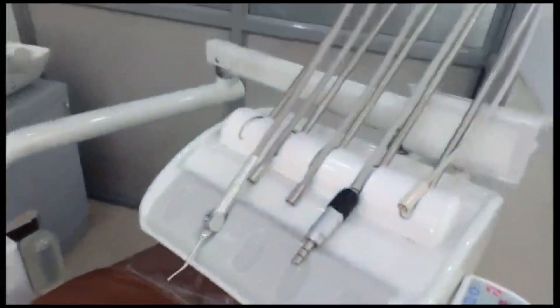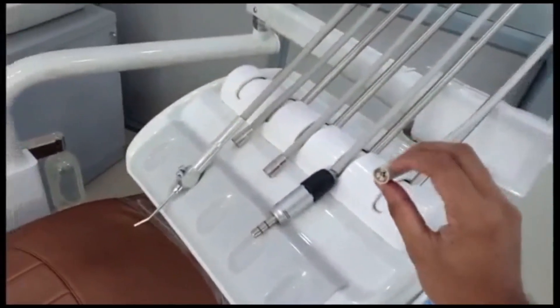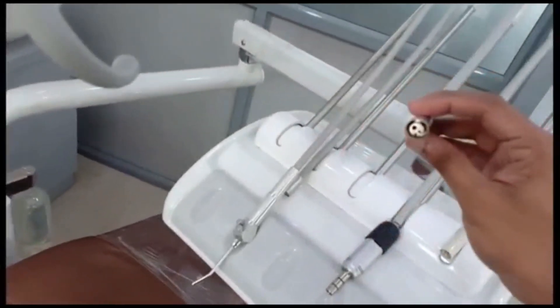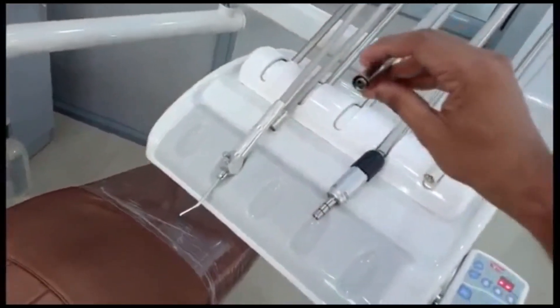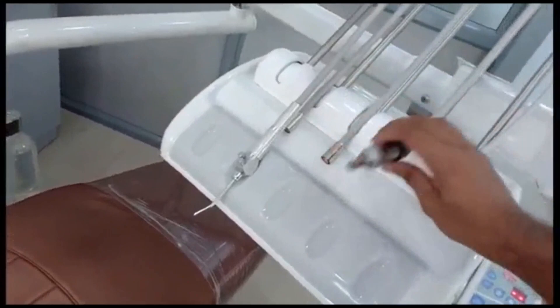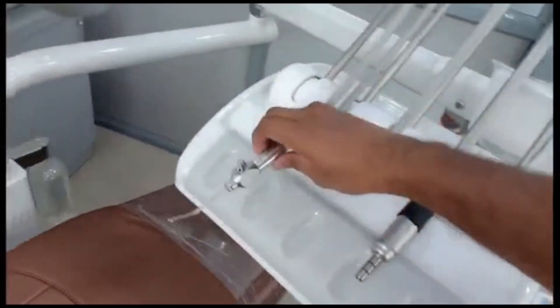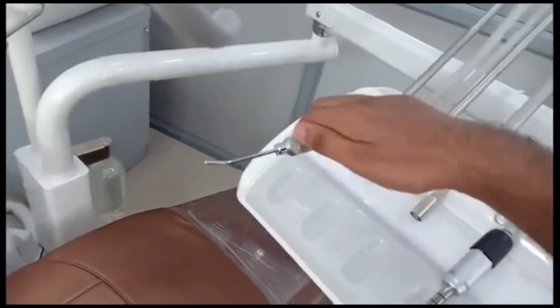We have various connecting cord parts here. This one is for the scaler — it is used for cleaning purposes. This is where we connect the air rotor, which is used to cut tooth and prepare the cavity. This is for the micromotor, which is a slow-running tooth-cutting device. This unit also has water and air options.